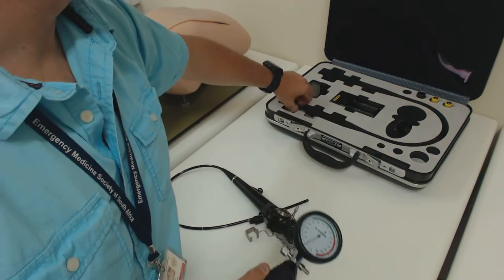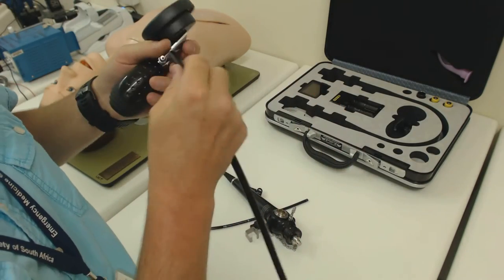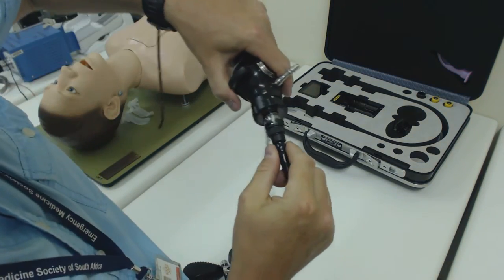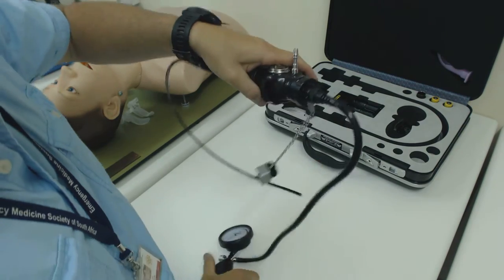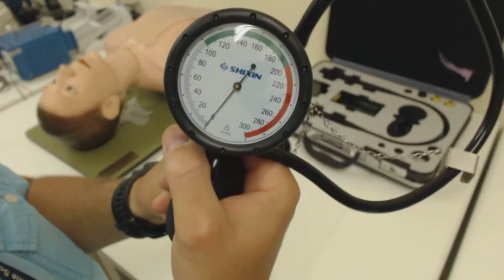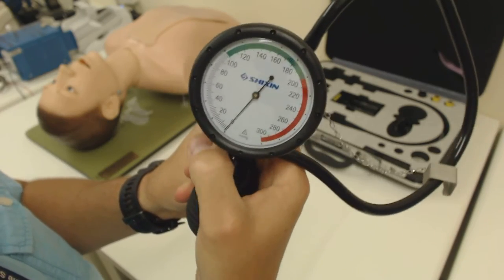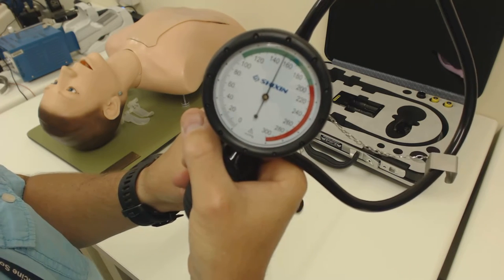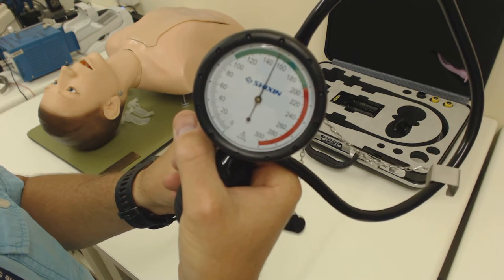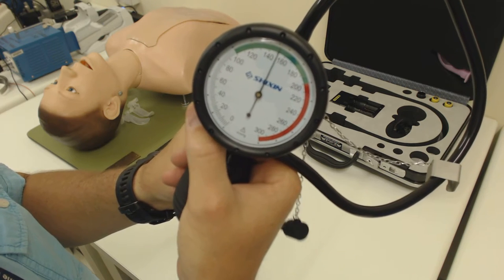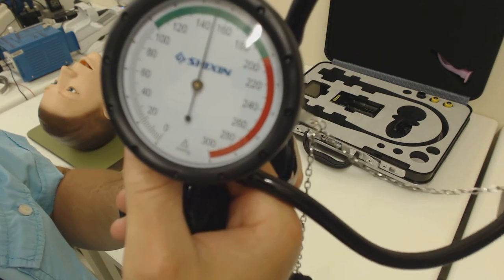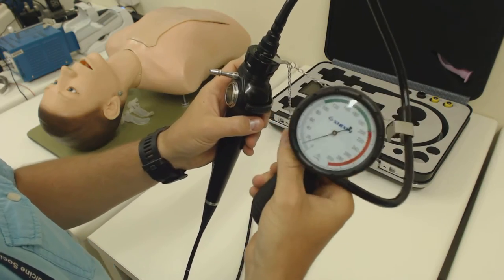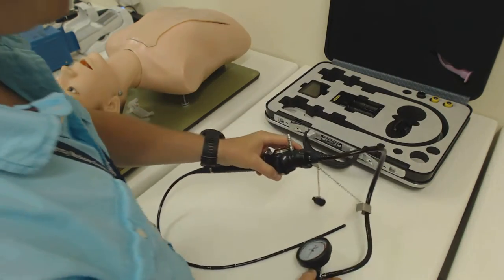You have a pressure manometer and a manometer hose and this connects on the one side to the manometer and on the other side it attaches to the pressure seal. Once that's nicely connected, you can then pump up your manometer. You want to aim here at a pressure somewhere in the green range, probably around about 150mm of mercury. What this is doing now is it's making sure that the scope integrity is intact and that there are no leaks from the outside or from the working channel into the inner workings of the scope. You can see here that the pressure is not falling, it's nice and steady and so we know that the scope is intact. This should be done before every use and after use before the scope is cleaned.